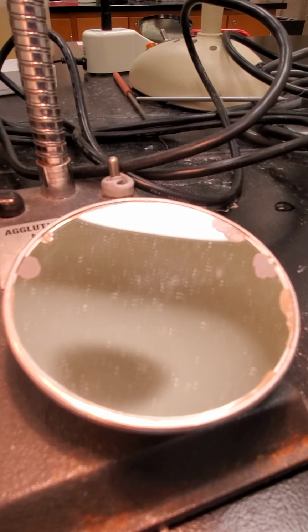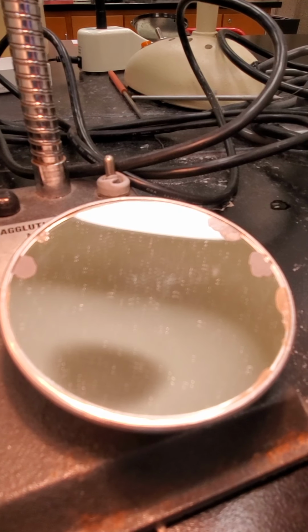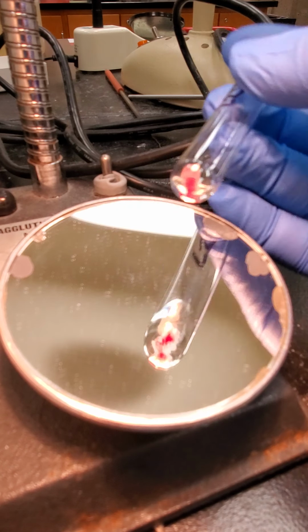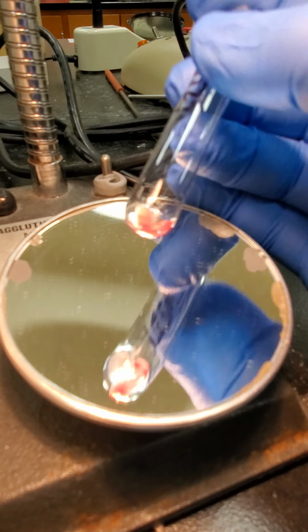Okay, so if you guys want to record this reaction, this is for our O-pos unit that ends in 6527, and this is the A,B tube.